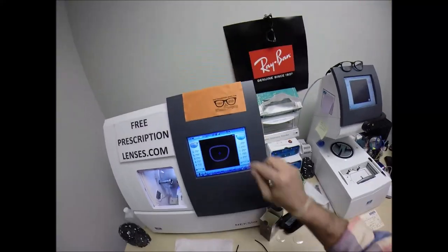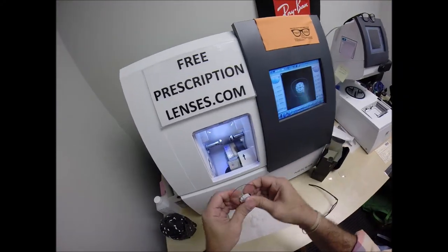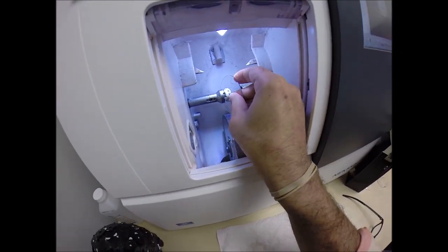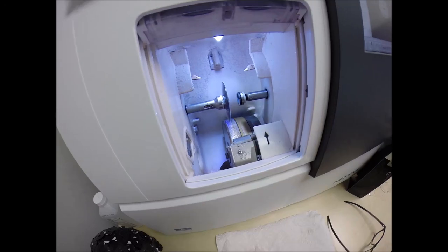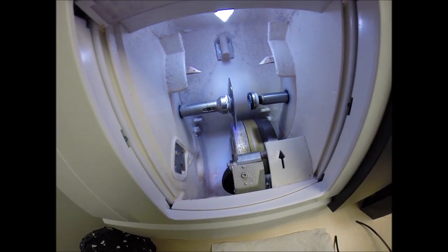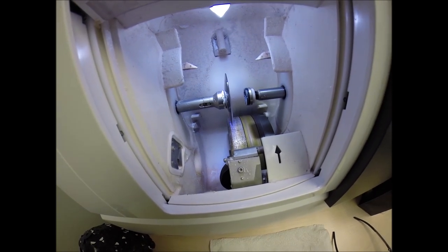So let's go ahead and flip that over to L, press that on there firmly, put the magnet into the Chuck, the Charles, the Chucky Baby, the Chuckster, Sir Chuck-a-rama. Okay, everyone gets 50 cents off the next sale if they can tell me something else to name for this Chuck.